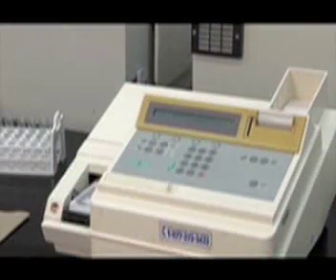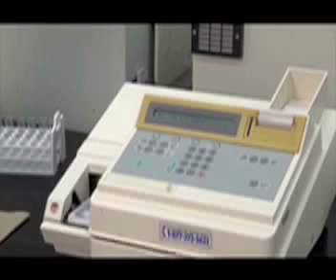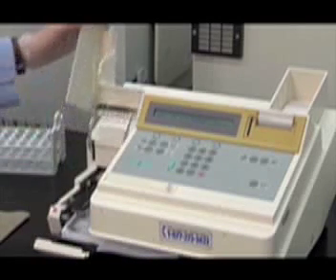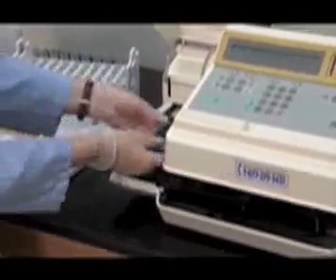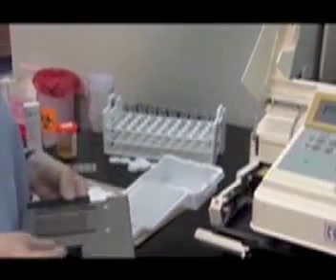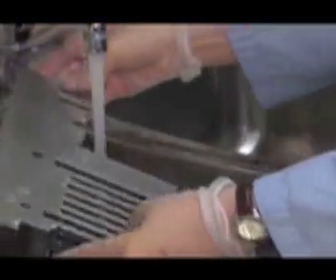Weekly maintenance on the Urichem 1000 consists of replacing the transport tray and cleaning the transport plate underneath. To do this, press the Clean button and lift the side door on the left front of the analyzer. Remove the transport tray and slide the transport plate out of the analyzer. Rinse the transport plate under running water. Check that the black strips under the plate are not covered with urine residue.